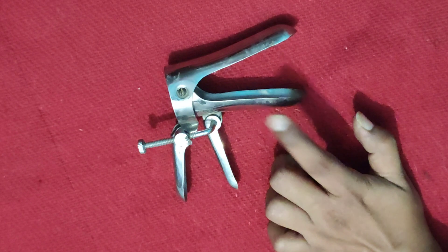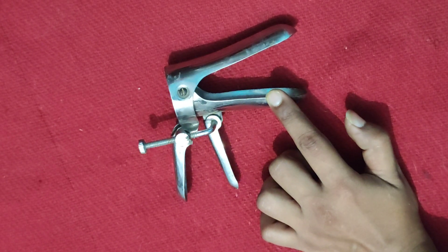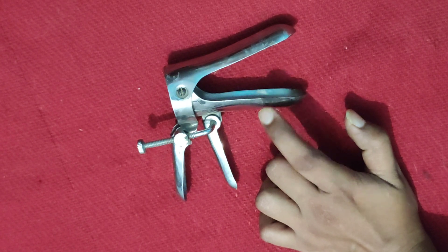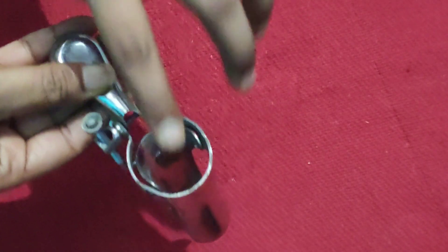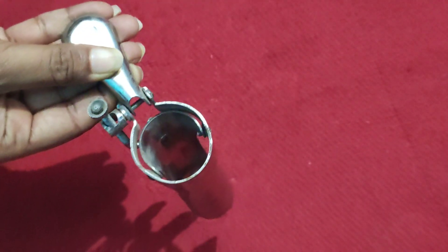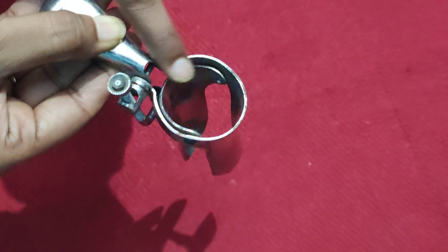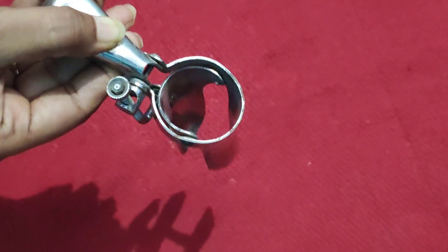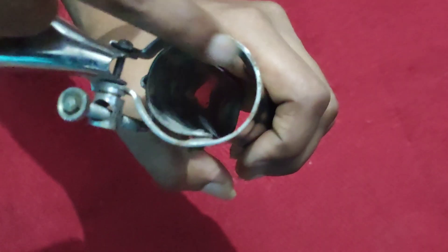The anterior and posterior blades — the posterior blade will sometimes appear slightly larger. It is having a circular rim at the proximal end, which will help in examination of the vagina. Once we insert it, we can examine the vagina via this instrument.